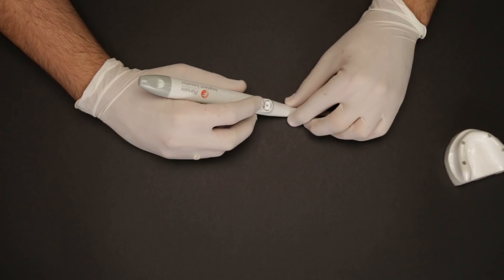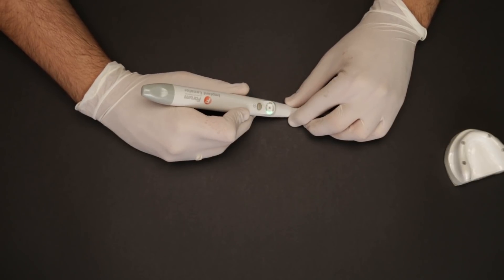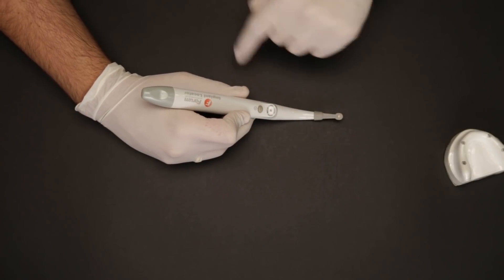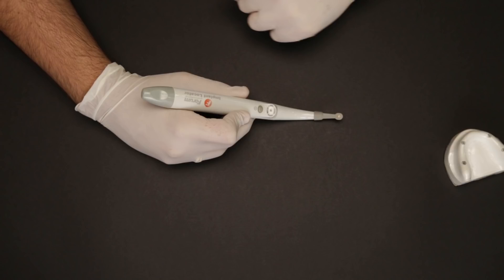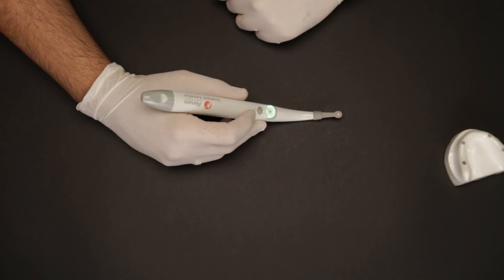It's a very simple gadget to operate. We just push the on and off button once and we hear a beep sound. We can see that all four light segments are turning green, which means the locator is auto-calibrating. Once the green segments start blinking together, it means that the implant locator is ready for use.